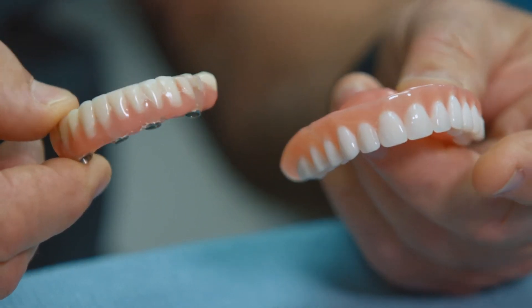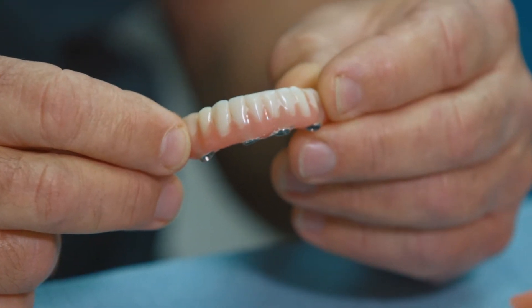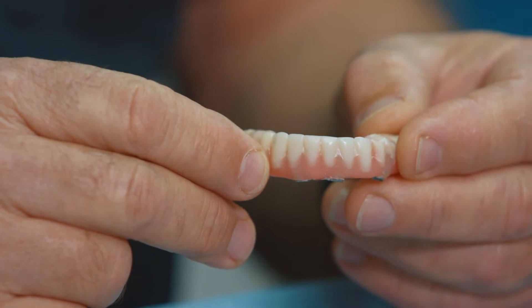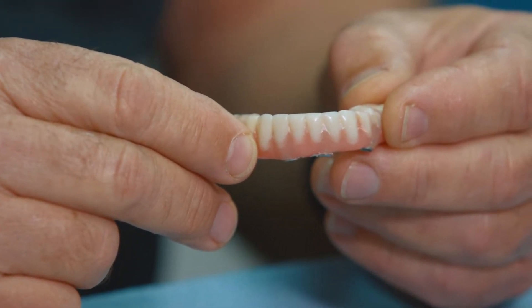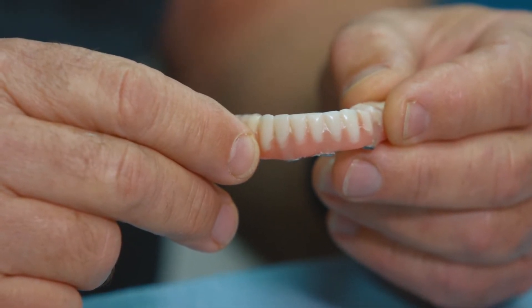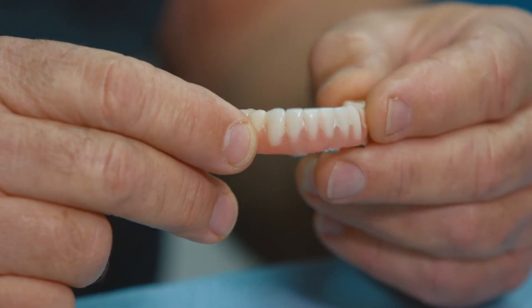This is the same material as the denture, it's just a different application. But if this acrylic prosthesis is going to be your final teeth, then it should cost less. What you have to understand is that acrylic is not going to stand up to the test of time.